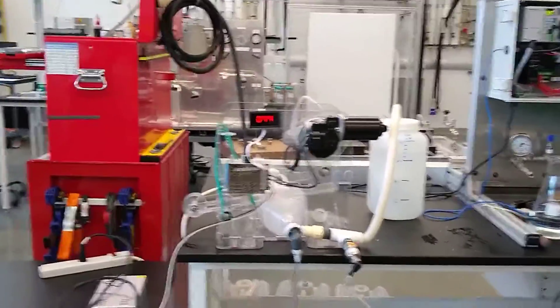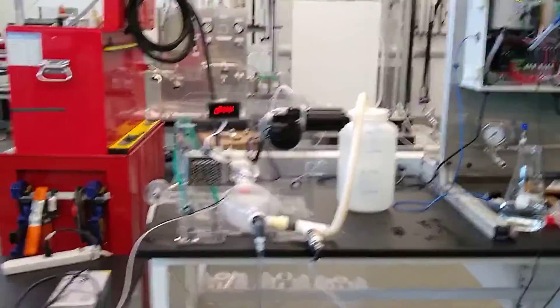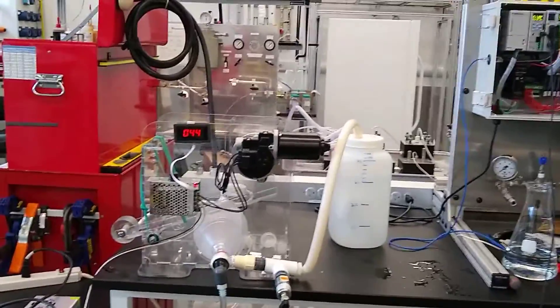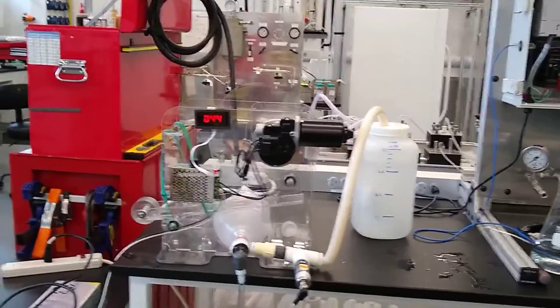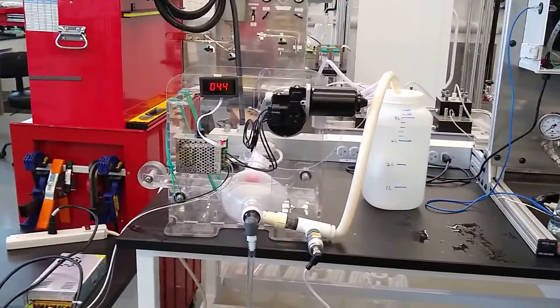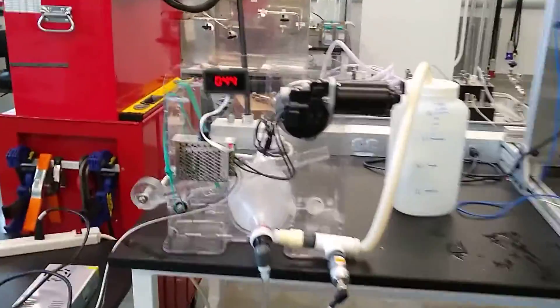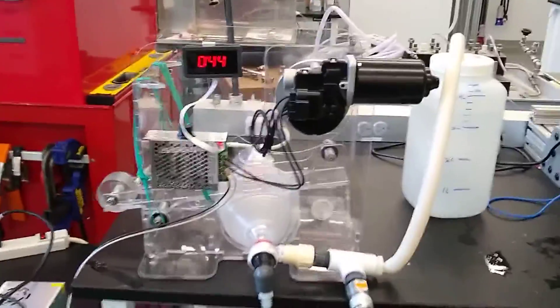This is the Fraunhofer Center at the University of Connecticut. It is April 5th, 2020, and this is a demonstration of a ventilator, an emergency ventilation device.